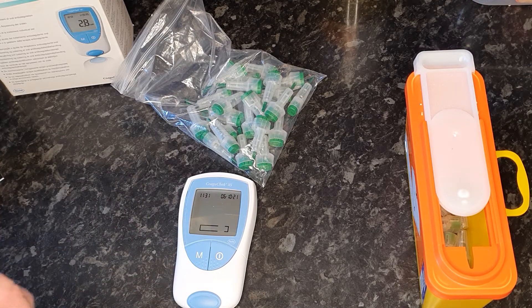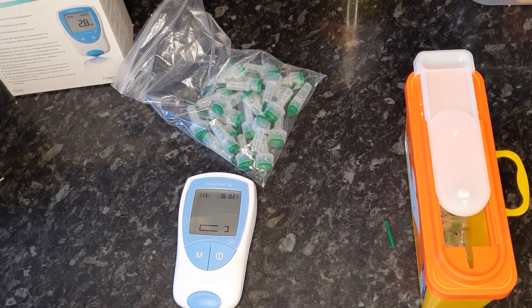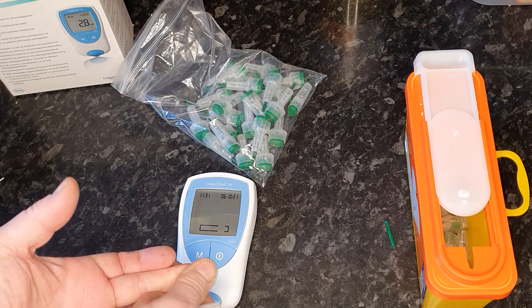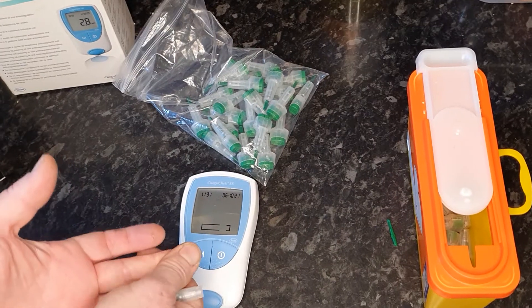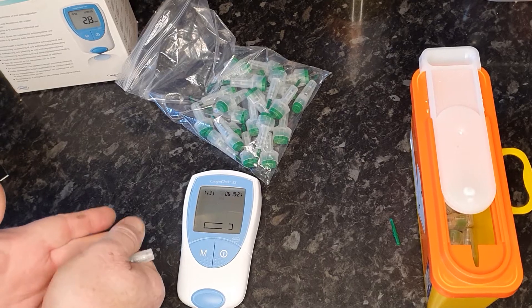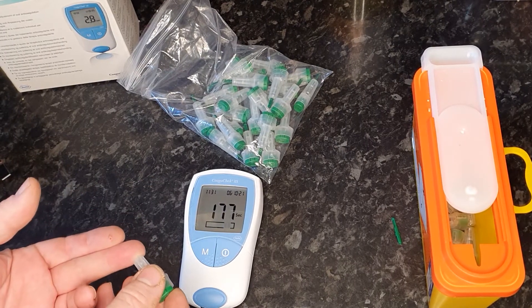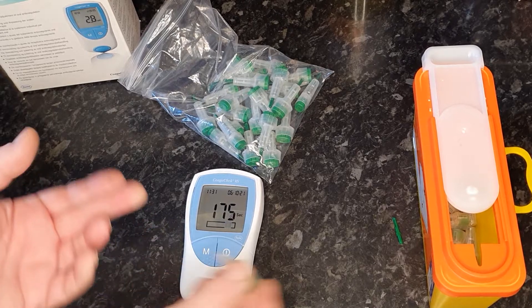Having washed your hands, you then prepare the finger prick by simply pulling the stick out. Massage the finger you're going to get blood out of. Don't use an alcohol-based soap or any kind of alcohol gel. Just massage the blood down to your finger — it's basically warming up — and you've got three minutes, 180 seconds, to perform this test.